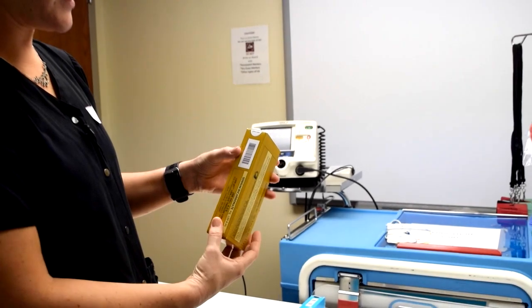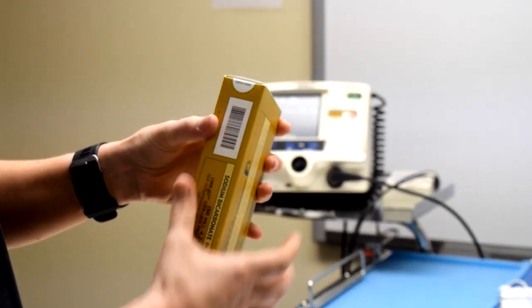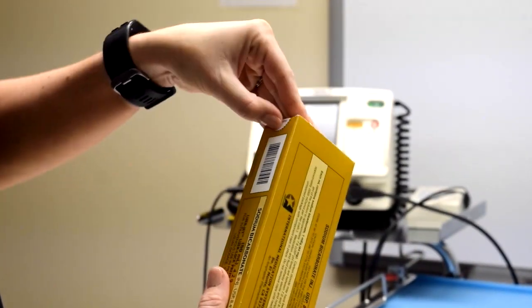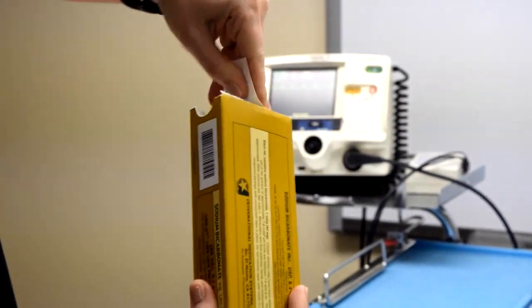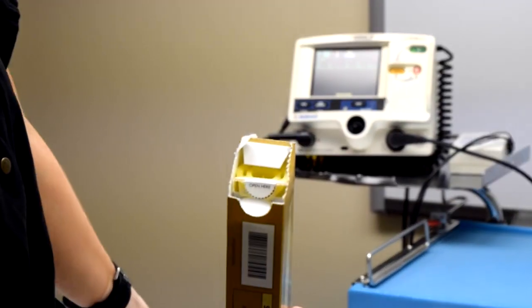Whenever I open these boxes, I notice that there's an open here tab, so I depress my nail right into that because it's a perforated edge. It makes it easy for opening, and then you just rip the whole top off since it's perforated like that.